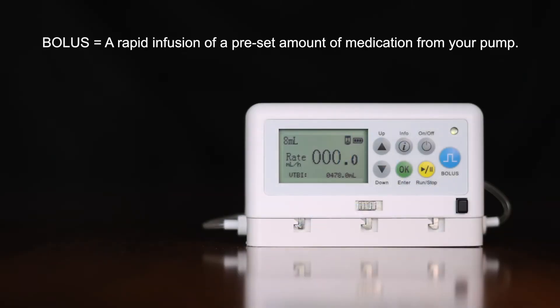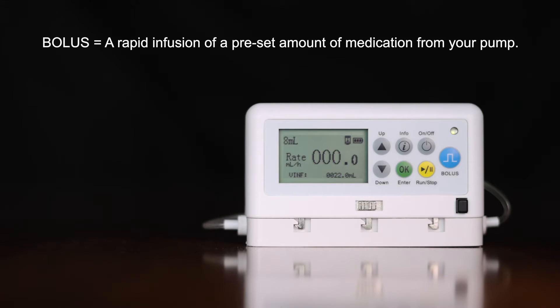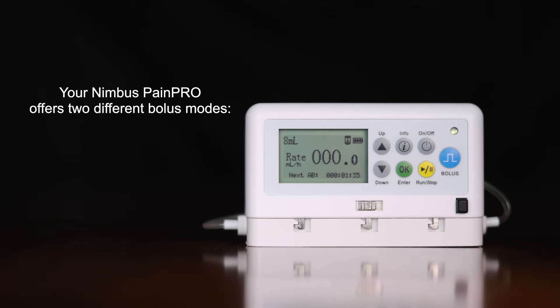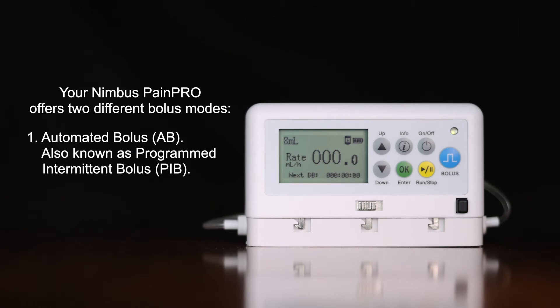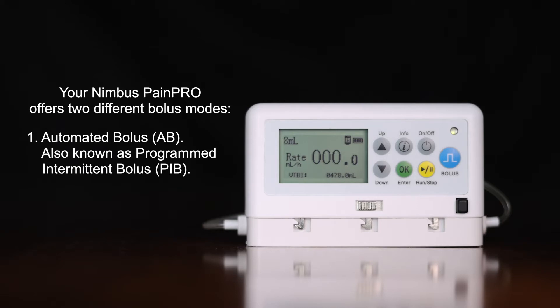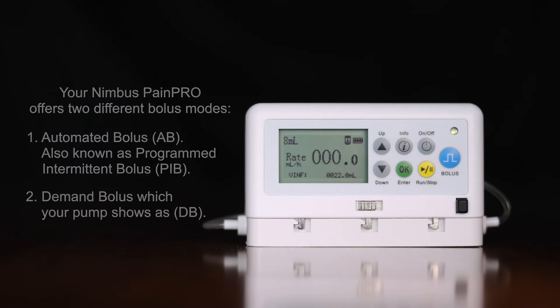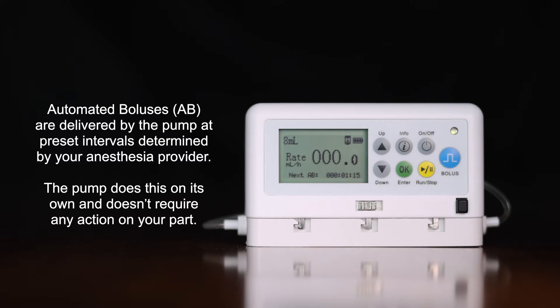A bolus is a rapid infusion of a preset amount of medication from your pump. Your Nimbus Pain Pro ambulatory pump offers two different bolus modes: automated bolus, which your pump shows as AB (also known as programmed intermittent bolus, PIB), and demand bolus, which your pump shows as DB.